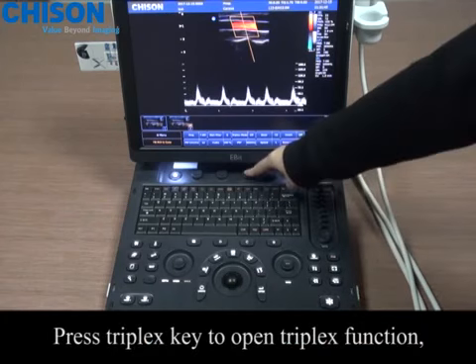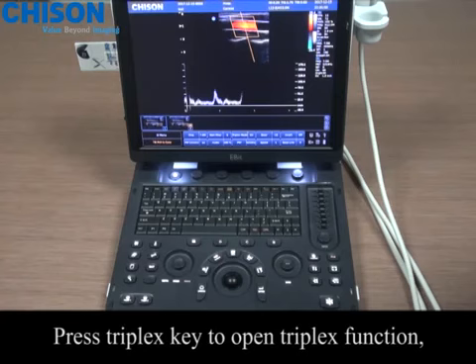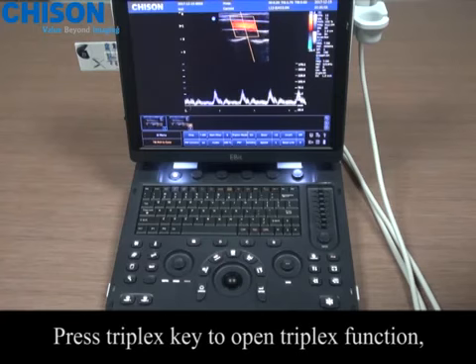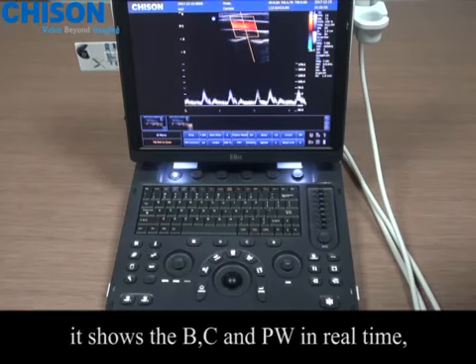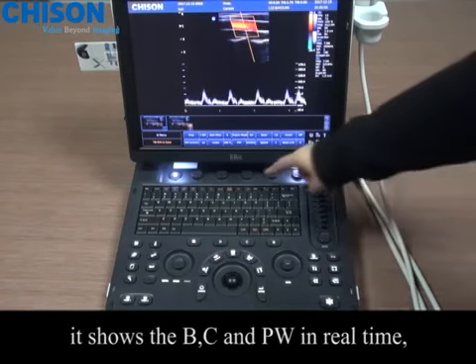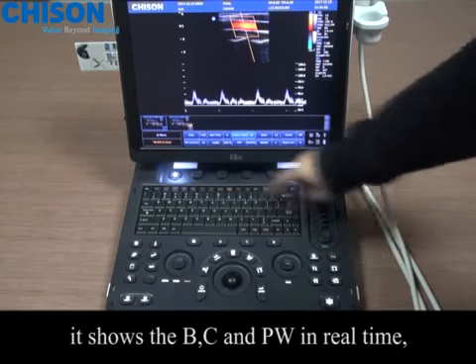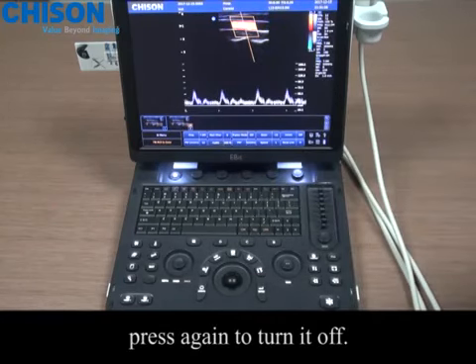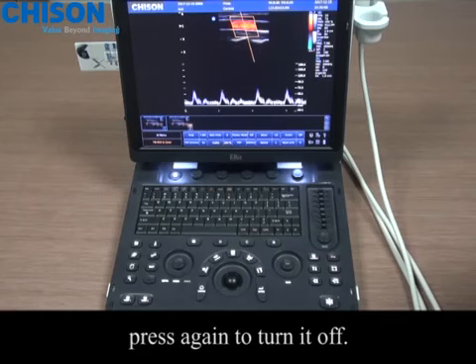Press the triplex key to open the triplex function. It shows the B, C, and PW in real time. Press again to turn it off.